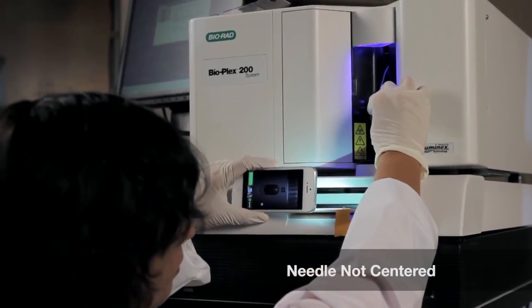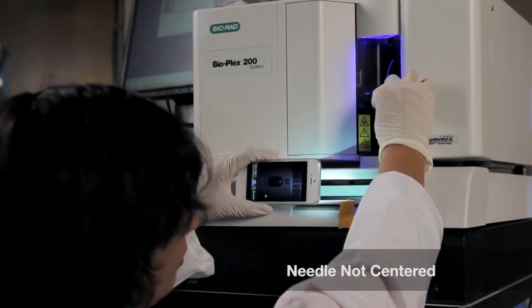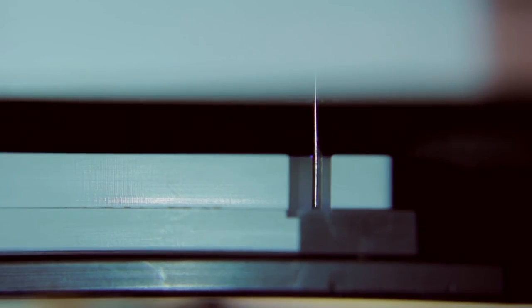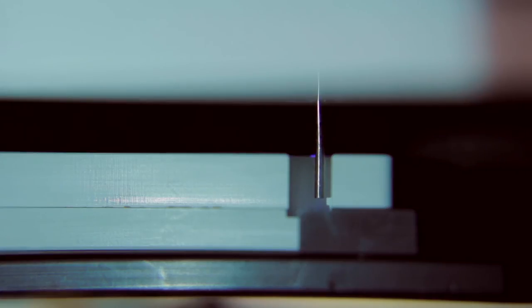If the needle is misaligned or the needle guide is off-center, needle movement is restricted. This problem usually requires the attention of a Biorad field service engineer. Please call technical support for assistance.